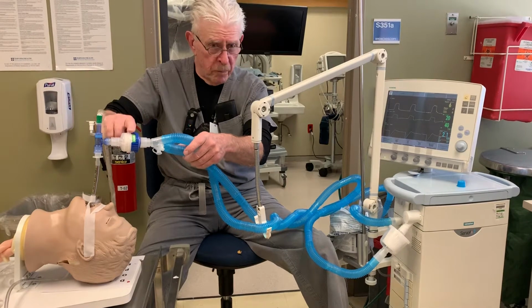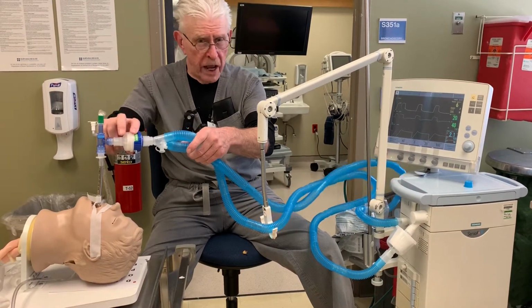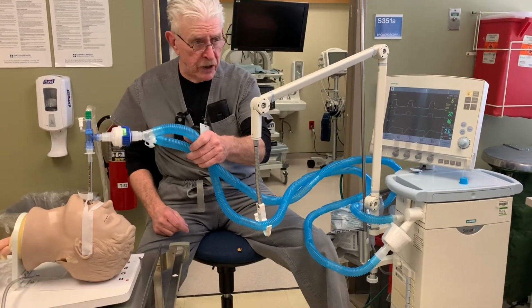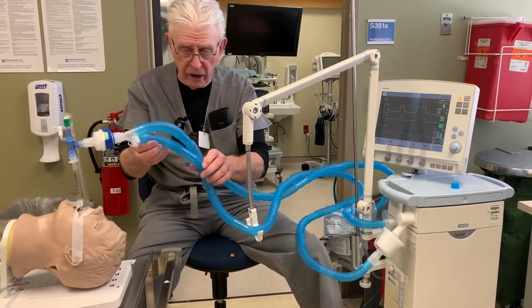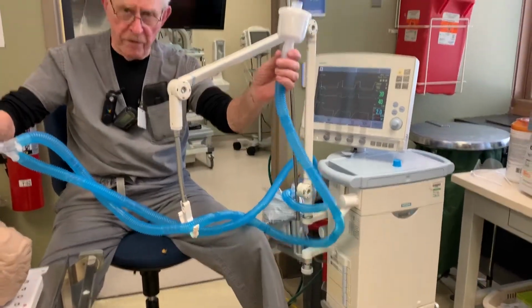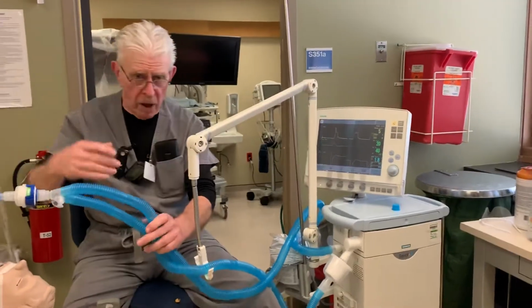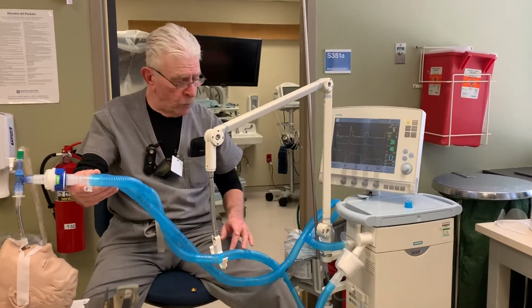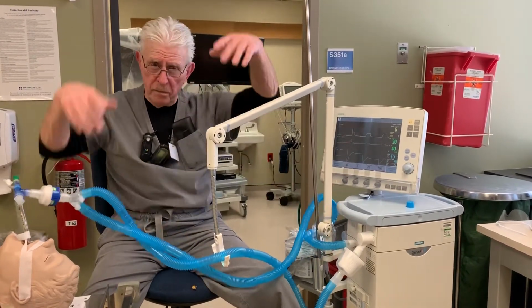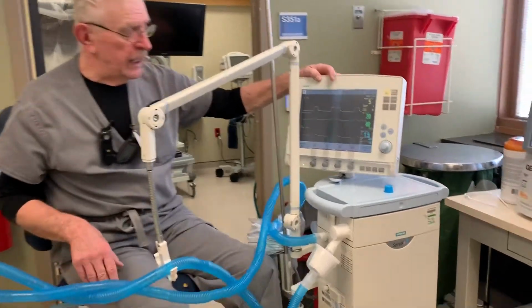This is an HME, an artificial nose, that collects moisture on exhalation and then delivers that same amount of moisture to the patient on the next subsequent breath delivery. On the exhalation side, there's a HEPA filter here for filtering out any particles, anything that might be remotely connected to what is going on in that patient's lungs, to protect it from being discharged into the room.